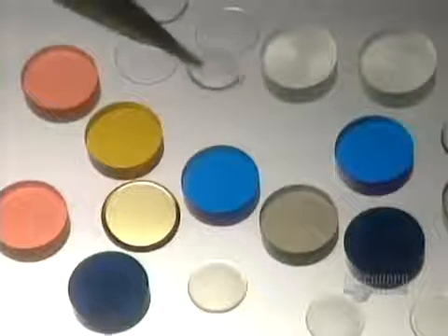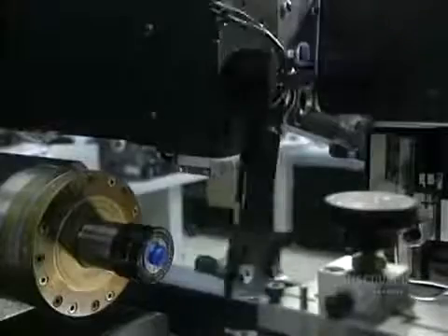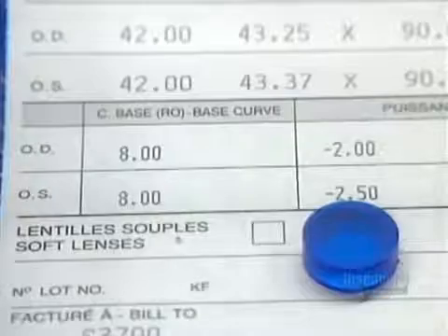Contact lenses have been in existence for over a century. At first completely rigid, they have now become gas permeable and as flexible as gelatin. These small polyhema discs are used to make soft polymer contact lenses in a variety of colors.